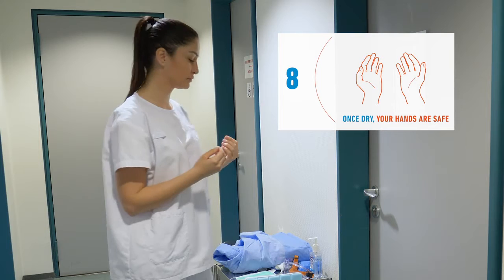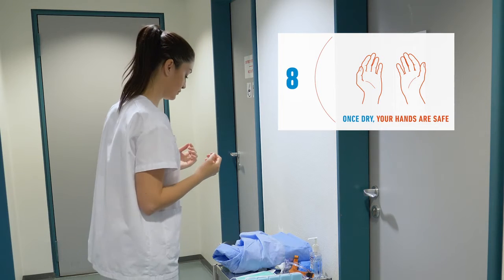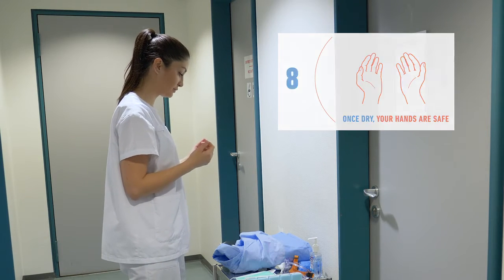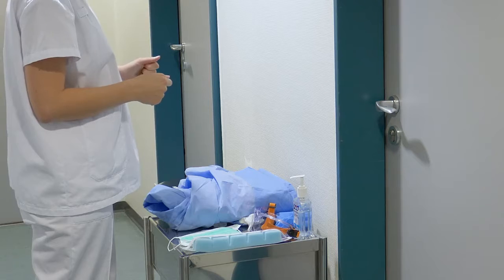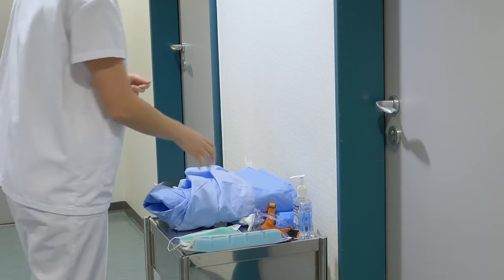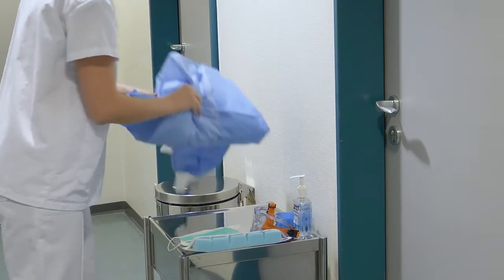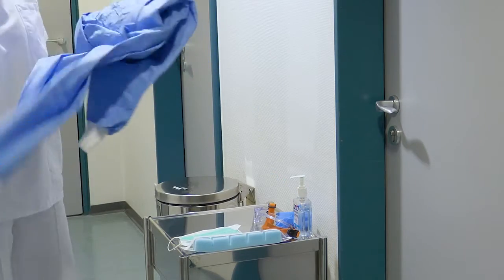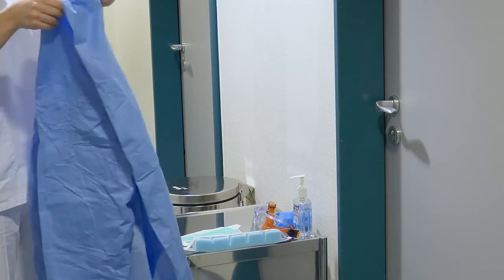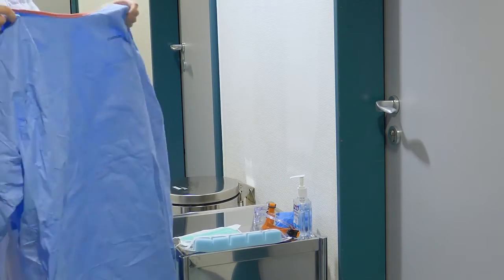Congratulations, now your hands are clean and safe to proceed with the PPE. Now that you're ready to put on the equipment, check the integrity of the equipment and do not use any damaged equipment.